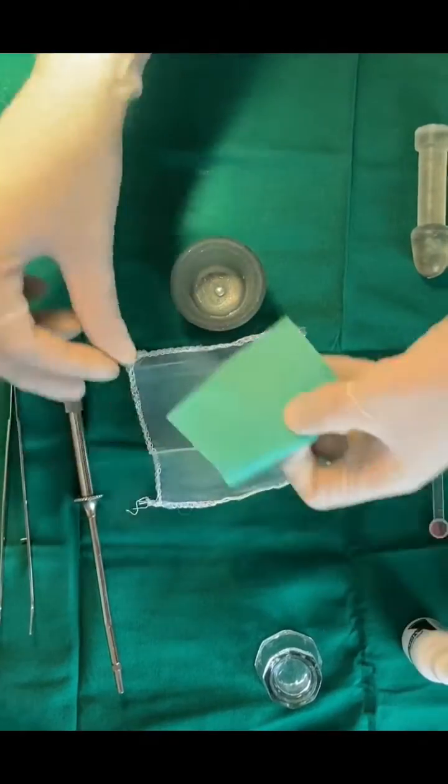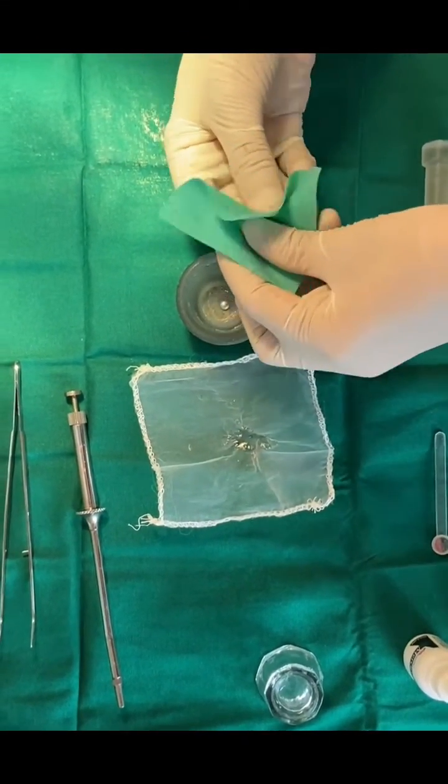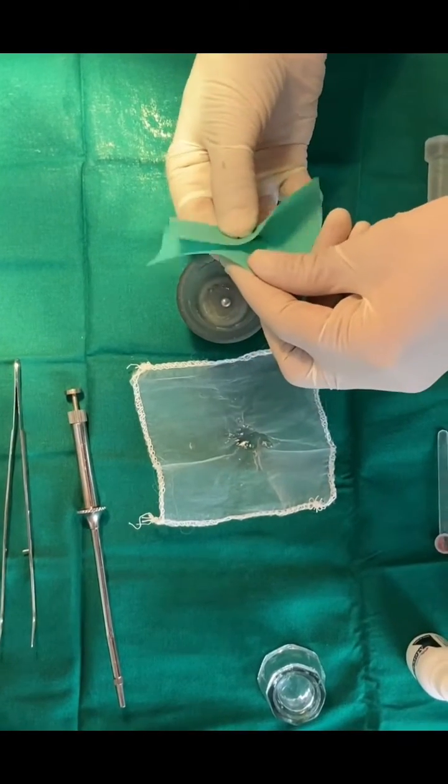Mulling is done using a dry piece of rubber dam and rubbing it vigorously between the thumb and forefinger for 2 to 5 seconds.